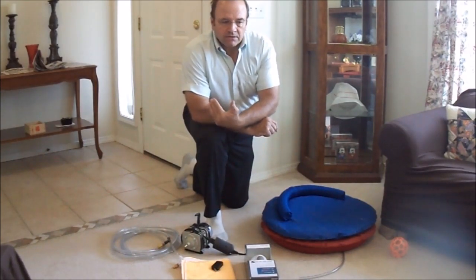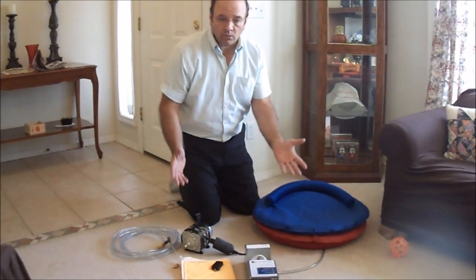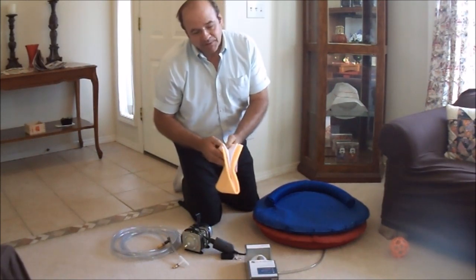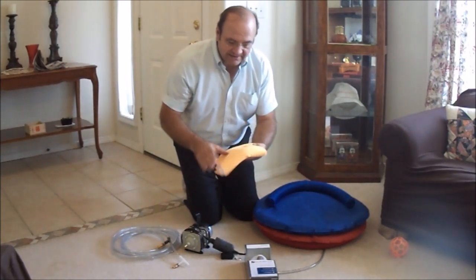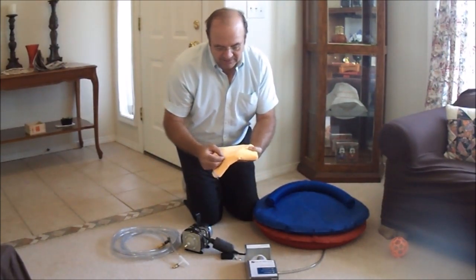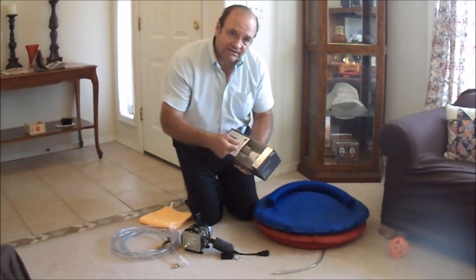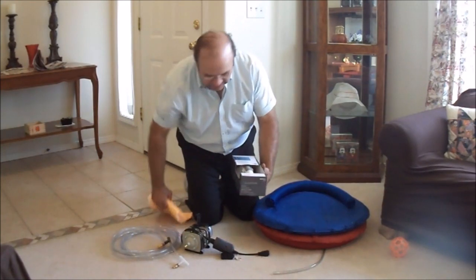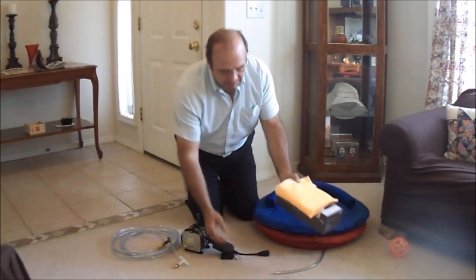Hello, my name is Lynn Fuller. I have a company called Lifestyle Solutions, and I make a product called the Personal Cushion Lift. I'm making a short video to demonstrate the latest version, which is designed to be used more for people that need to get up and down from the floor and not necessarily get in and out of the bathtub when it's filled with water. There are a few changes I've made to the design that make it easier for someone who mostly gets up and down from the floor. Quite a few people have difficulty standing or with their balance, and they occasionally fall, or they kneel to the ground and can't rise by themselves, so they need a cushion lift to help them stand up to a seated position so they can rise to their feet easily. That's what this is designed to do.